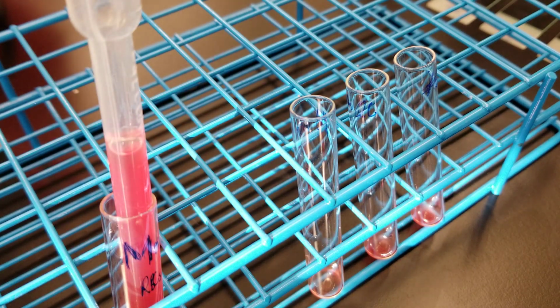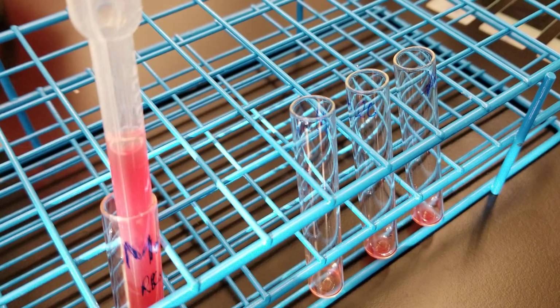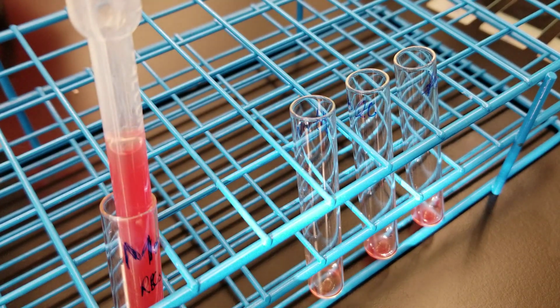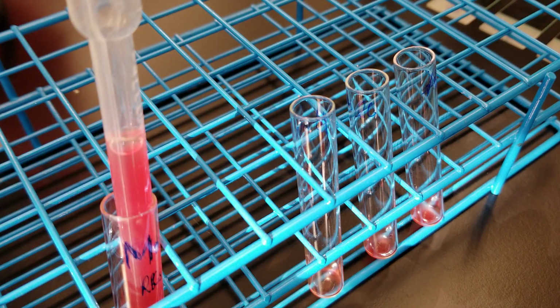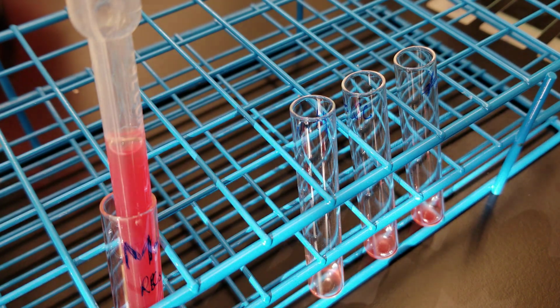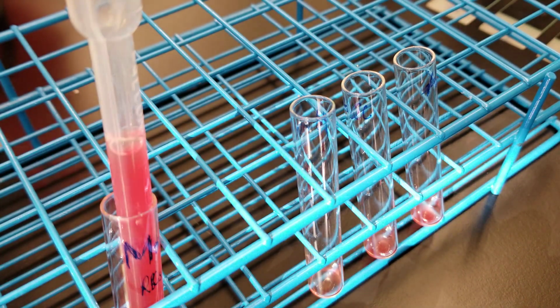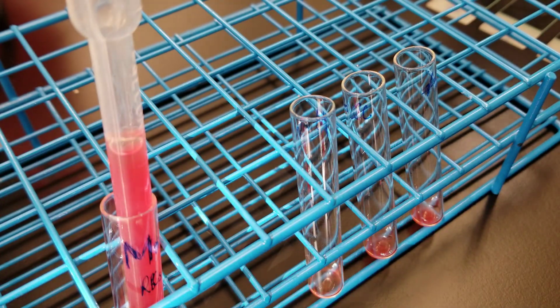So positive, you need to do the Kleihauer-Betke afterwards in order to identify how many doses are needed of the RhIg in order to prevent alloimmunization of the patient for the next pregnancy of a possibly D-positive fetus. And if it is negative, then you obviously don't need to have more than 1 dose.